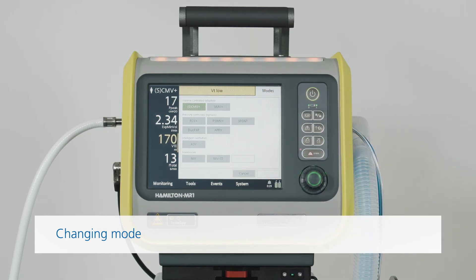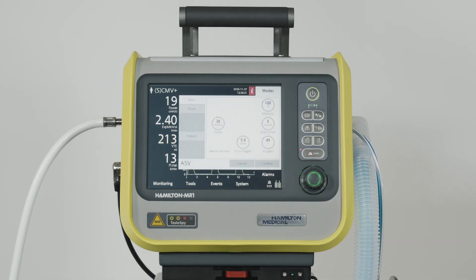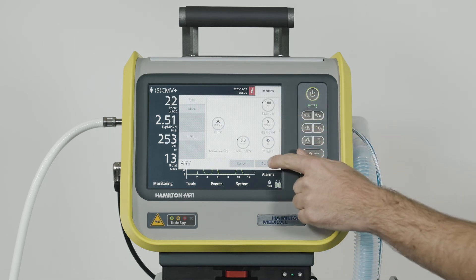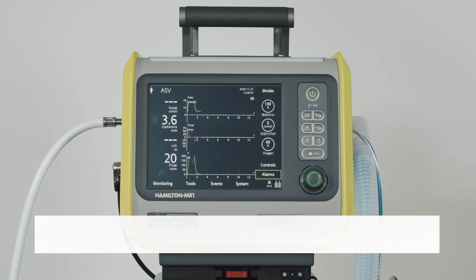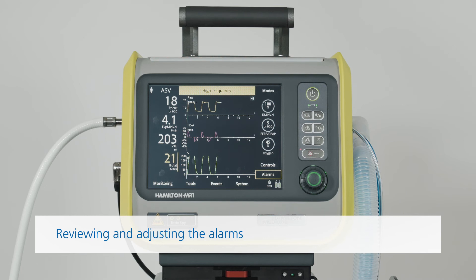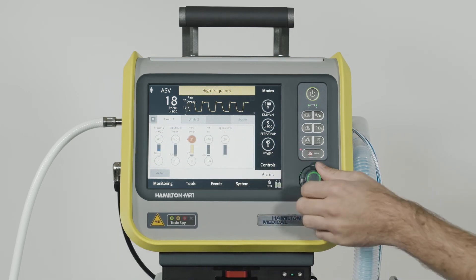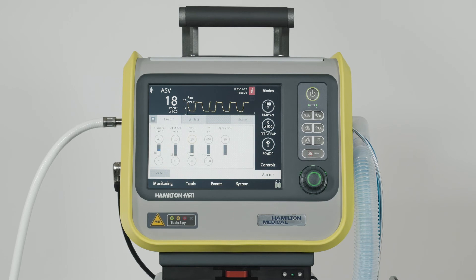Just select the mode you want and then confirm it. The Controls window will open and you can review and adjust the control settings as needed. Touch Confirm to activate the new mode. After changing the ventilation mode, you should always check the alarm settings. To check the alarms and adjust them as needed, touch the Alarms button. Then select the alarm control and adjust it accordingly.